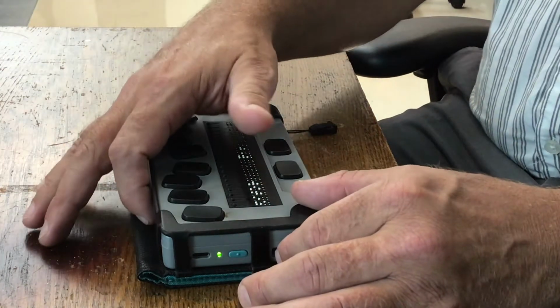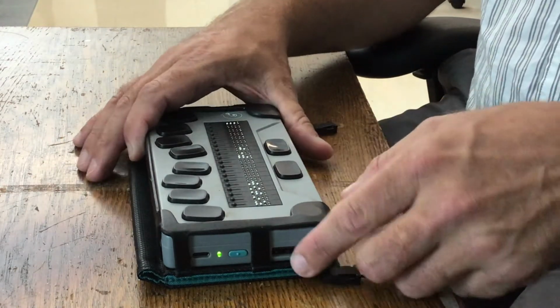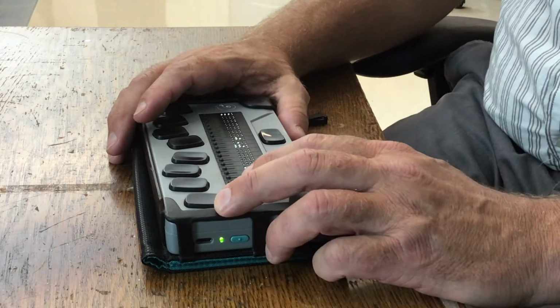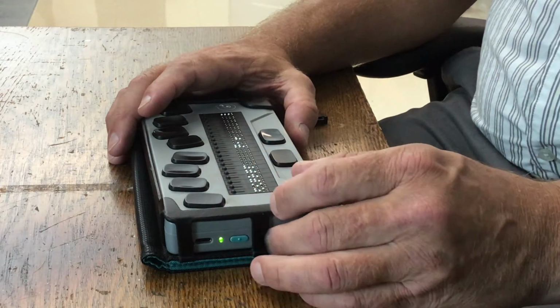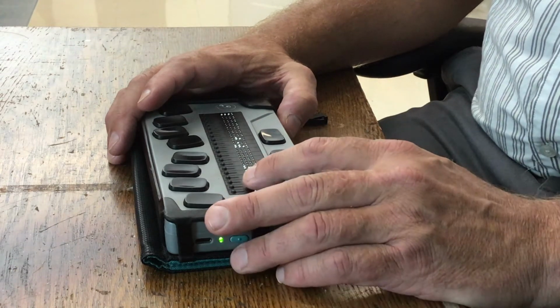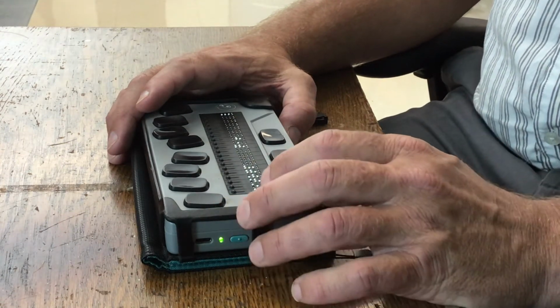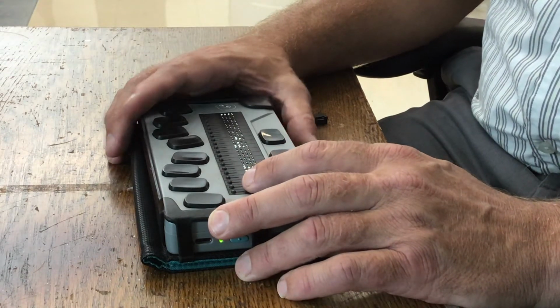So there's 2 ways. On the side over here, on the left side, you have a USB port. So if you download a file to a flash drive, I know that's old school, you can copy it onto the Chameleon. You would use File Manager, which I'll get to in a minute, and I'll talk about how to do that. Once you copy it onto your flash drive, you put the flash drive in here, access it on the Chameleon, copy it from the flash drive and paste it to the internal storage.